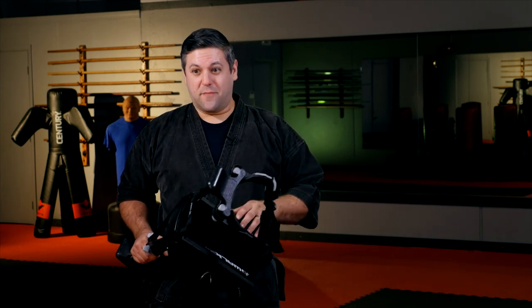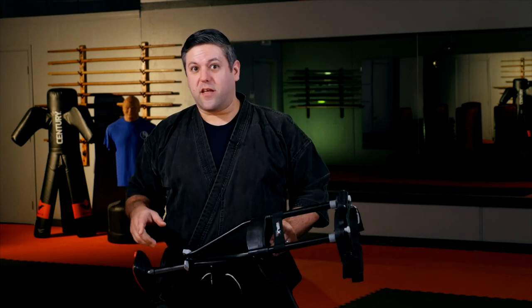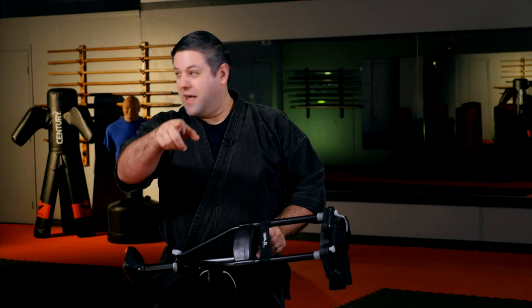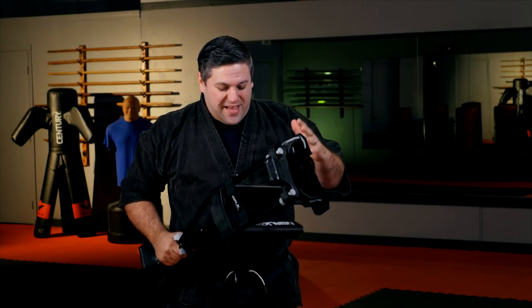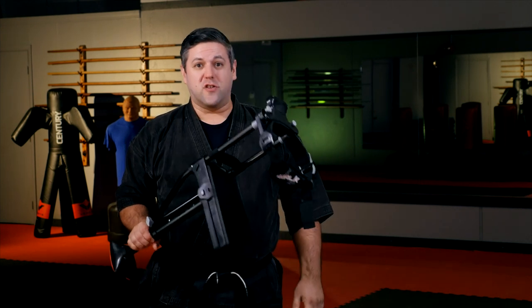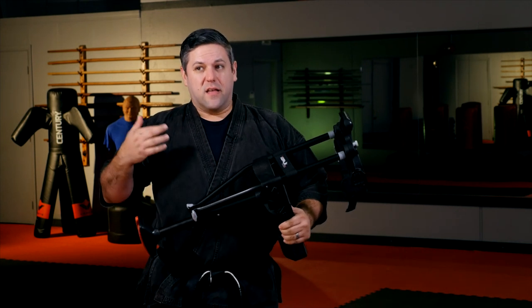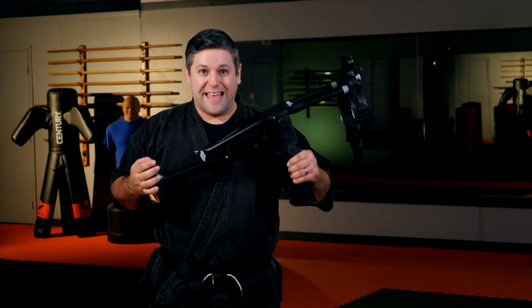One of my favorites was the first time I came to class to teach. I was in the parking lot walking and I saw some of the kids in the background — I could see them whispering to each other and pointing at me. When I turned around, they went, 'He has a leg!' So it was really funny. You're going to get jokes and funny reactions — this is a bizarre contraption to most people. I even went to a doctor's office and the nurses were like, 'What is that? That's awesome!' I'm actually surprised it's not more well known, because again — game changer.